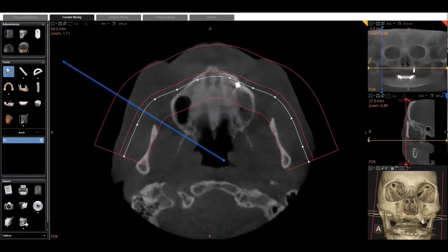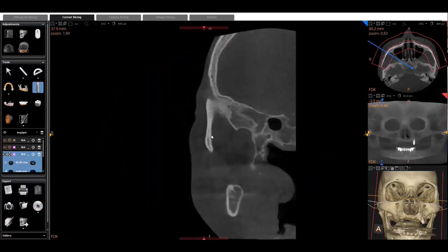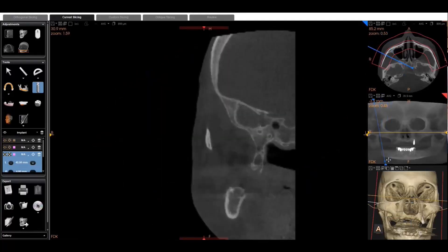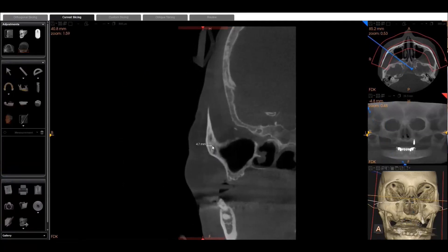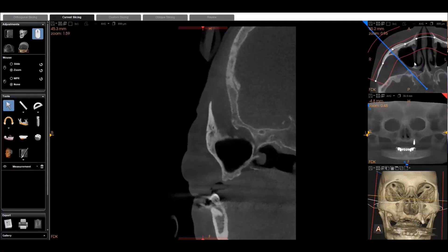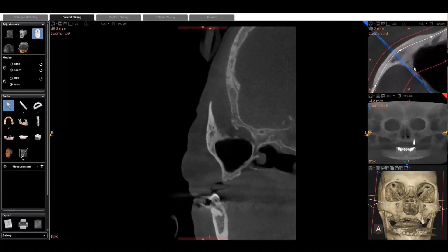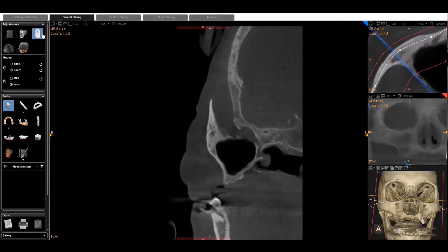Move the slice up to the maxillary arch — now we've maximized the cross-sectional view — and now trying to find a good spot to take some measurements. I had him zoom in a little bit further in those other views just to make it a little bit easier to see. So you can zoom in on your axial slice and zoom in on your panoramic curve. You might zoom in a little bit too much, but you get the picture. It changes it back to slide so you can use the mouse wheel and scroll back and forth a little bit more easily.